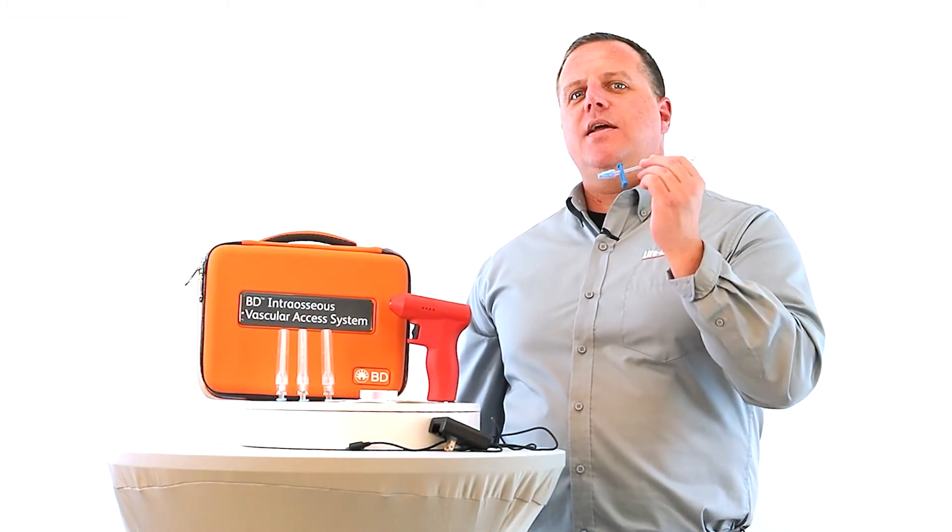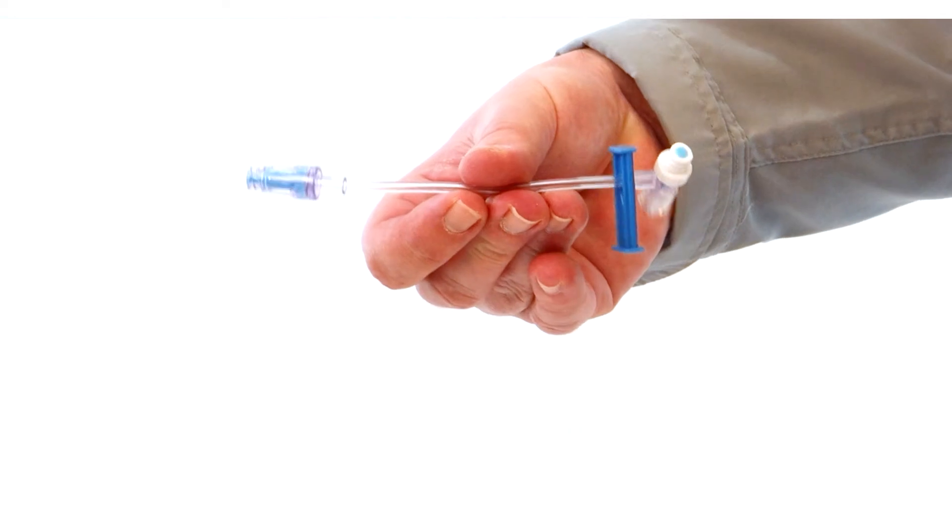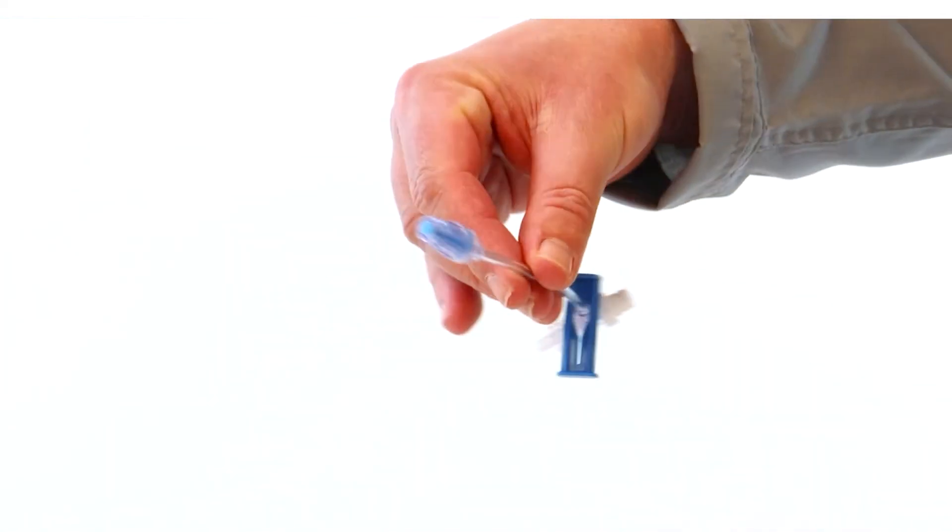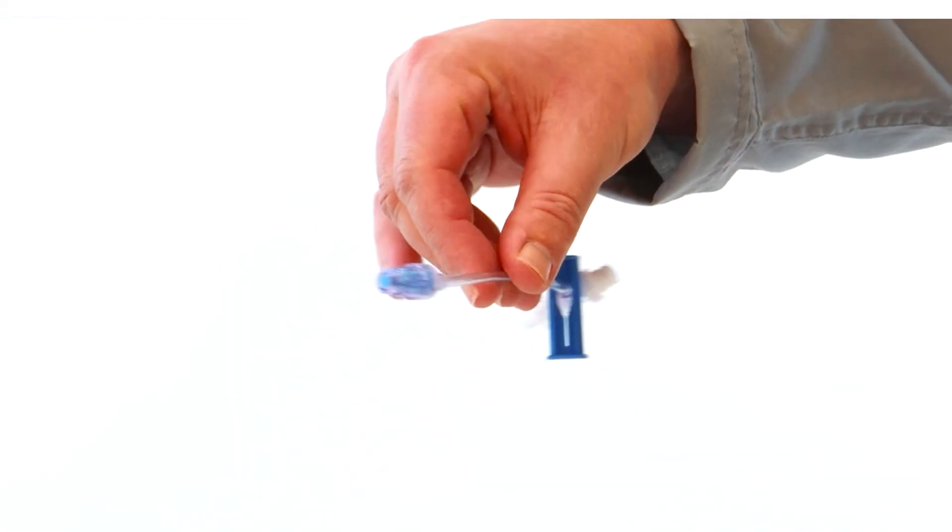The last feature I'd like to share with you today is the newly designed extension sets. These not only have one access port but two access ports.